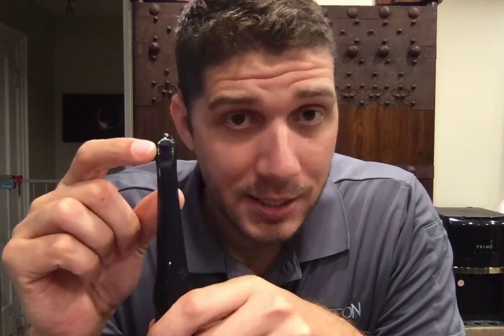Let's start with the actual camera itself, the physical features. Up top, you're going to notice the lens — that's the little square in the center. Around the lens, this horseshoe shape, that's the LED array. We have a mixture of bright white LEDs as well as blue LEDs. The bright white LEDs are used to capture what we call daylight mode — a normal, nice bright intraoral image. The blue LEDs are what we use when we're in the caries detection mode.